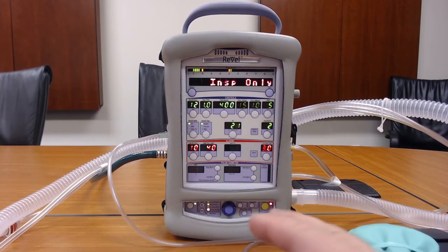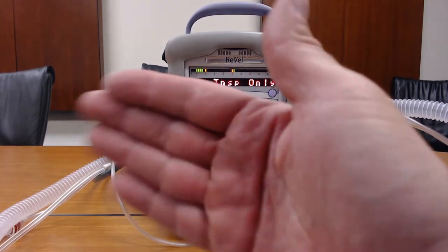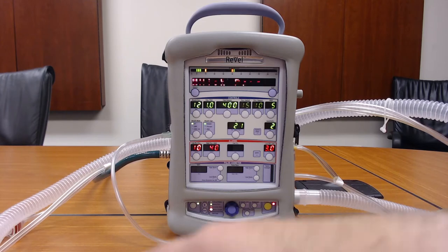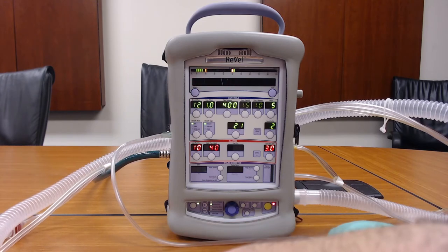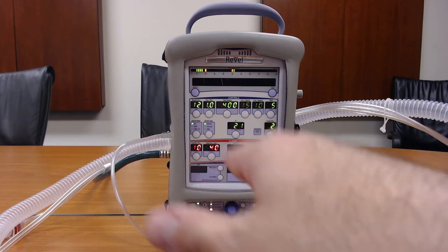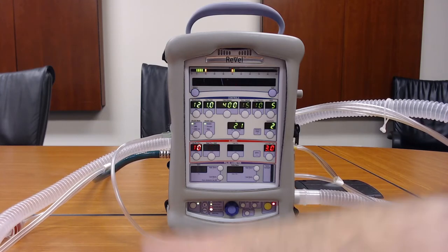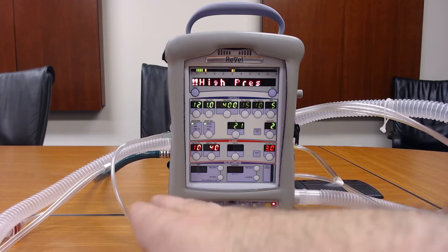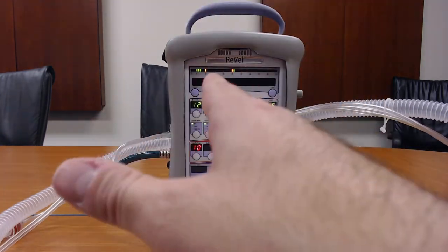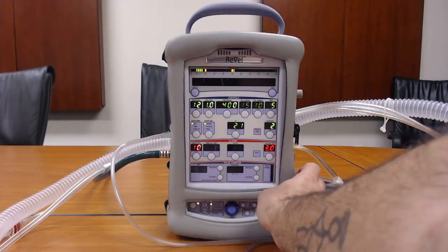The inspiratory only option is specific to ventilator operation of the nebulizer medication — the ventilator will only push medication through the nebulizer system at the beginning of the inspiratory cycle. This works only in AC volume mode, which is the only breath mode and breath type you can utilize for nebulized medication. You cannot use SIMV, CPAP, pressure, or PRVC. The nebulizer system will not show you the nebstart menu if you're in any other breath mode.